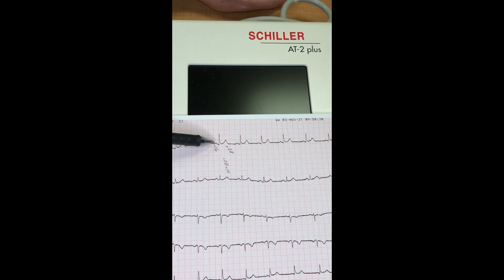So always look for P, QRS, T — four squares, two to two-and-a-half squares, and about seven squares — that's what you should see for the average adult. Of course this changes if somebody is moving around, or they're younger with a stronger heart; you tend to see some variation. But we're just looking at what's normal here.